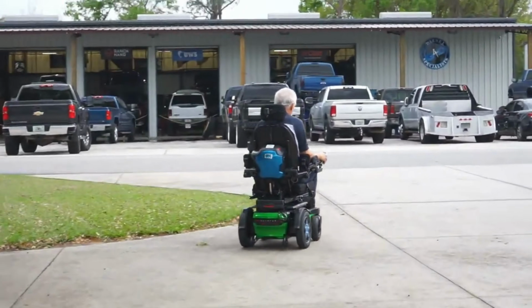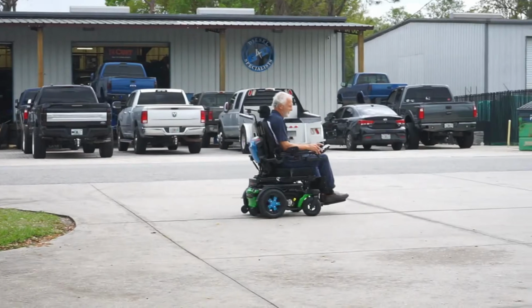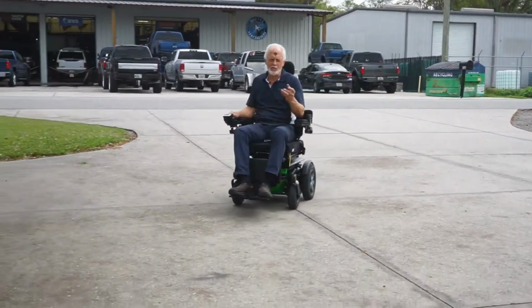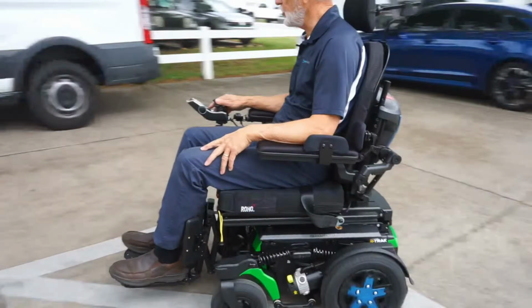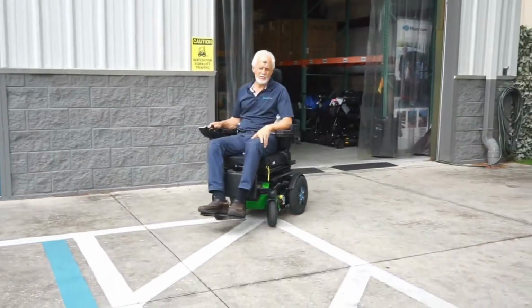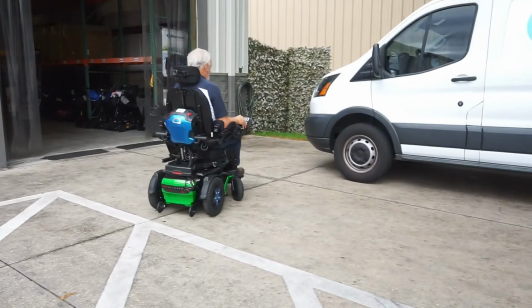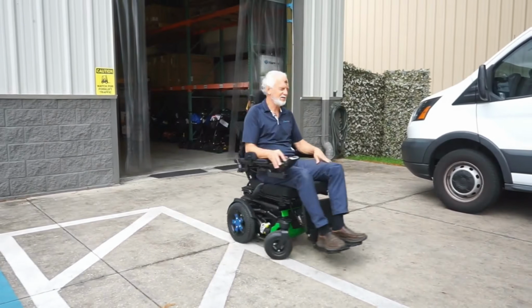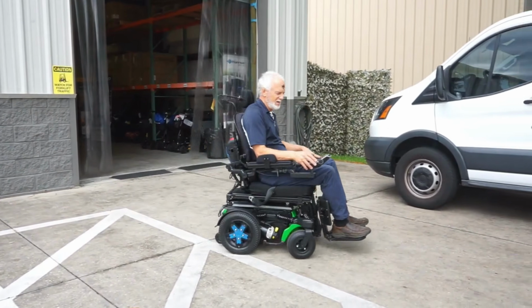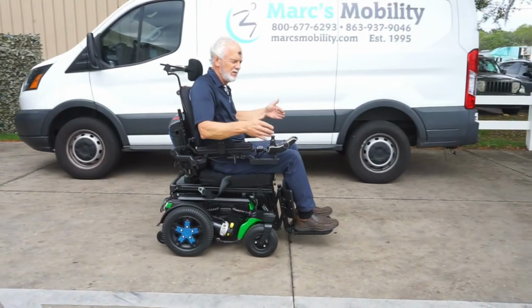So pretty much all the folding units are going to be a rear wheel driven unit, and manual chairs are kind of that rear wheel driven concept. But I can tell you, by going through some of the driving obstacles at the Quantum Rehab headquarters, a rear wheel configuration is the hardest to navigate in small spaces. So some people have used rear wheel drive before and they're used to it, so that is fine if they still want to use that inside.